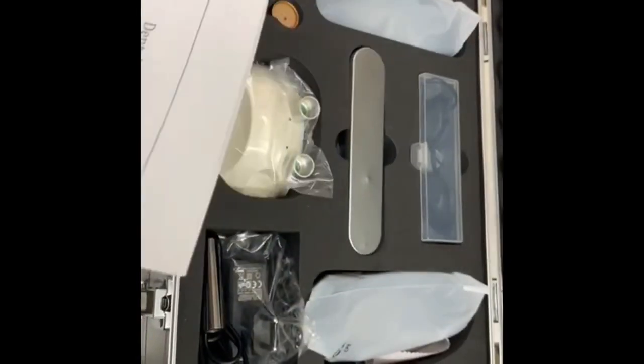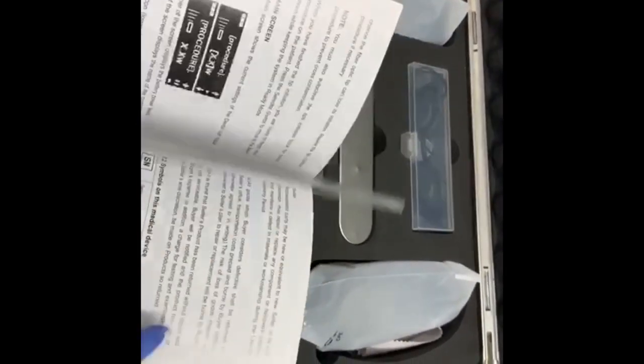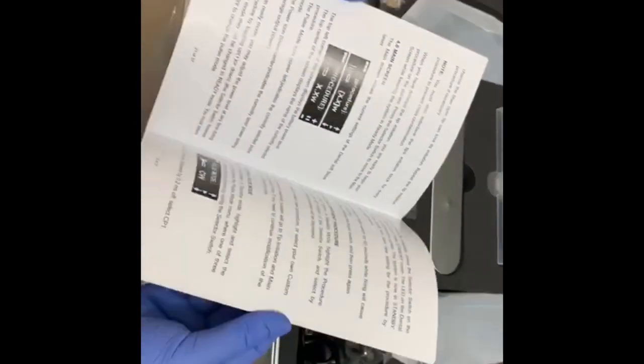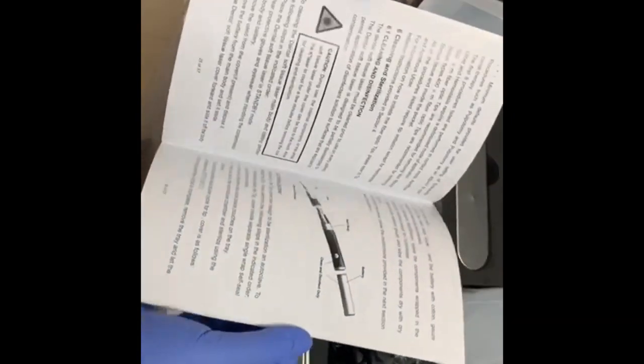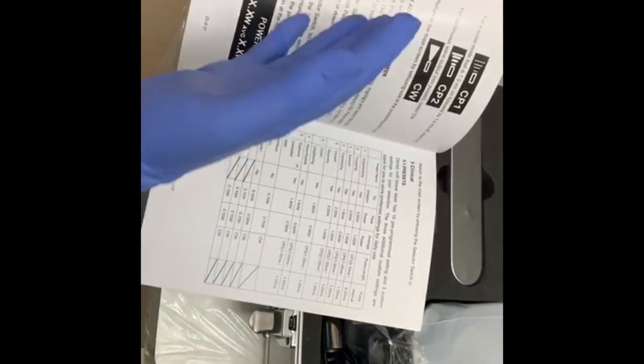So this is your manual. It's all written over here. What are the how to use this, what are the procedures, what are the setting times. So before using this soft tissue laser pen, I will prefer that you read every instruction very carefully.